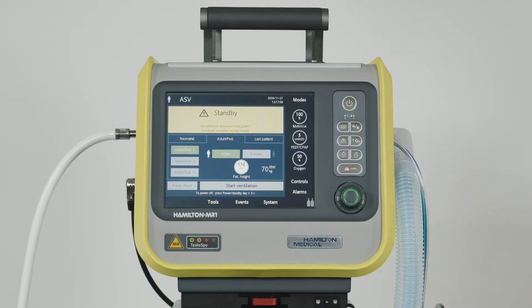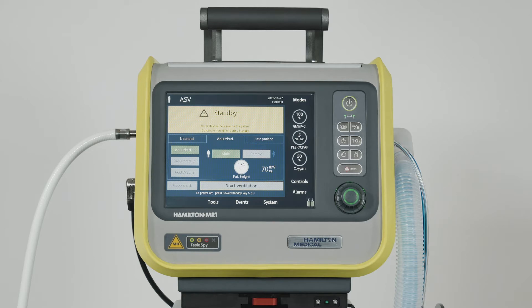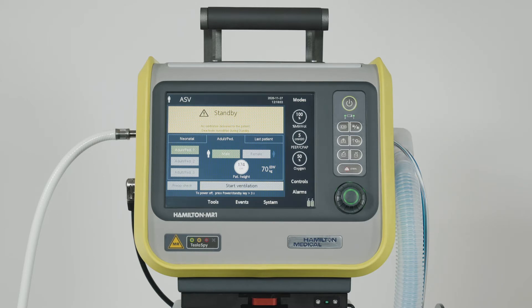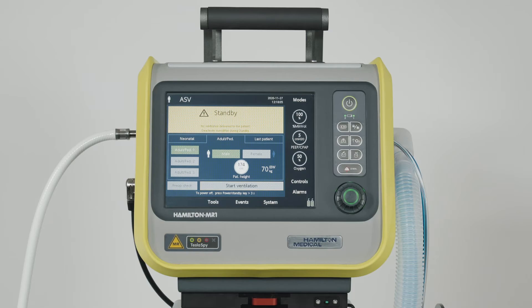When using the device in the MRI environment, ensure that all accessories are MR safe or MR conditional.